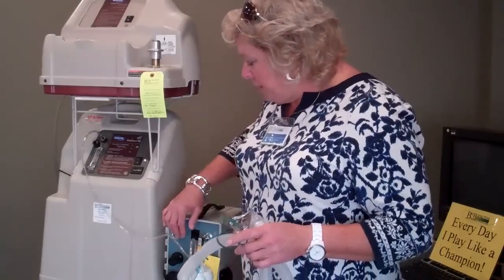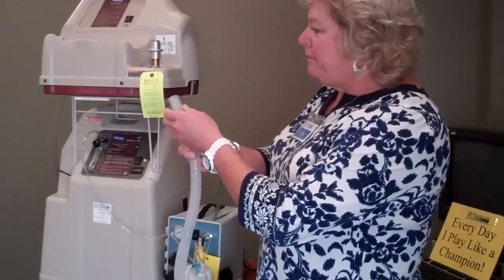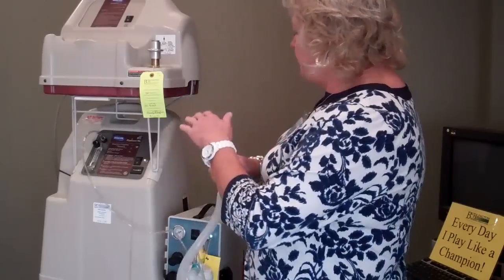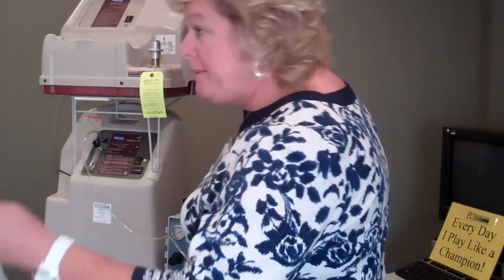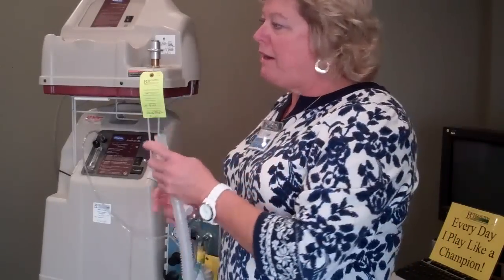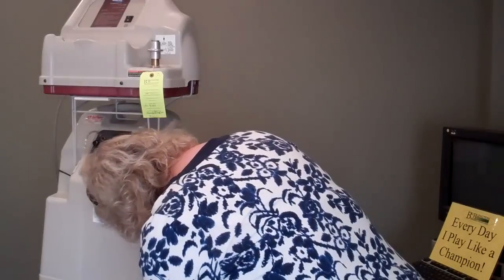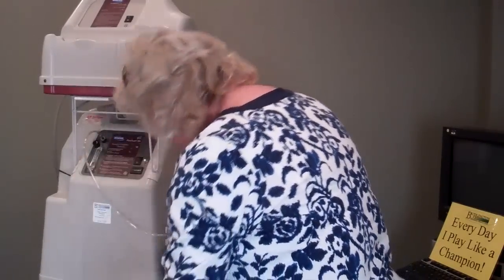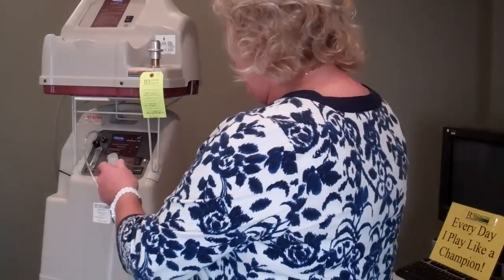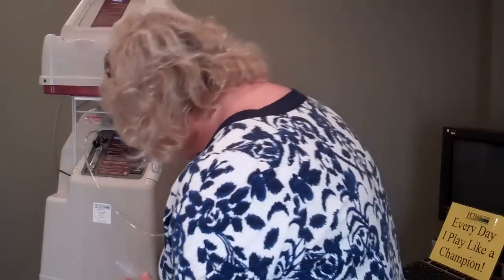I'm going to turn this on so you can hear how loud it is. There's a mist that comes out of here, and if you hold it up to a dark surface you can usually see it. That's one way you want to make sure it's working — to see the white mist.